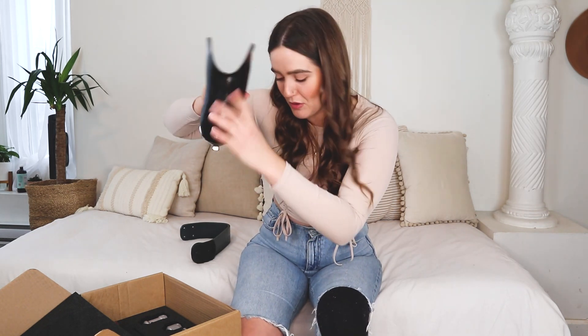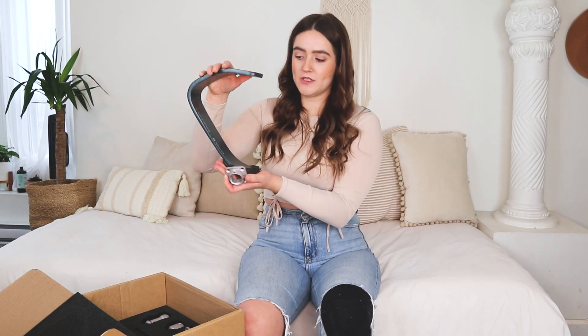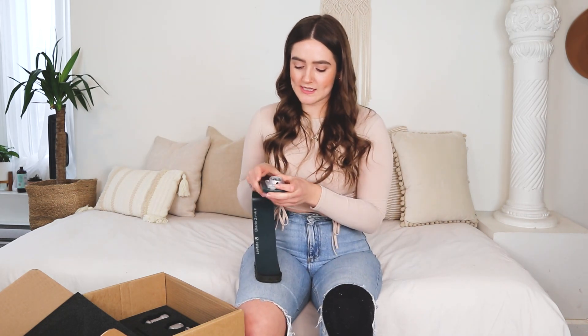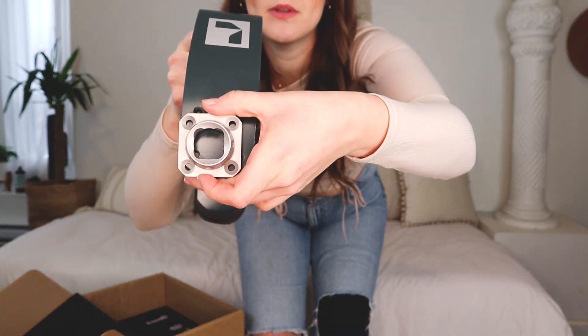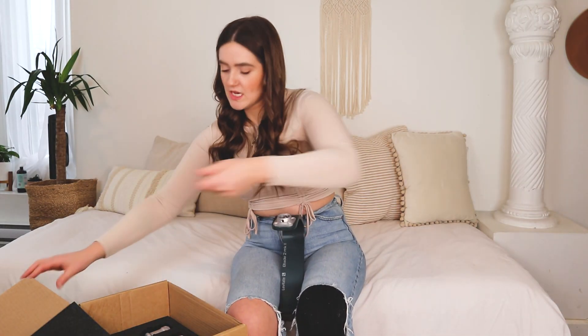You have to look at what kind of bolt is here and pair it, so you're facing the metal pieces upwards in the proper manner — for example, it would insert like that. You're gonna start by holding your Levitate blade upwards and aligning these holes here, so four holes you're gonna align with these four holes.